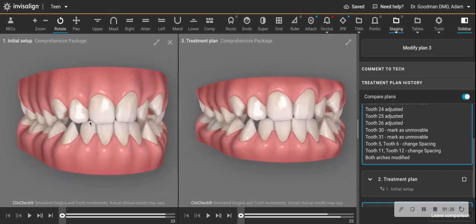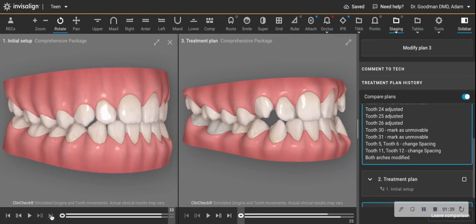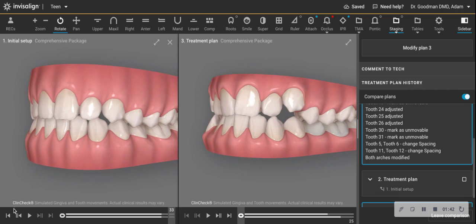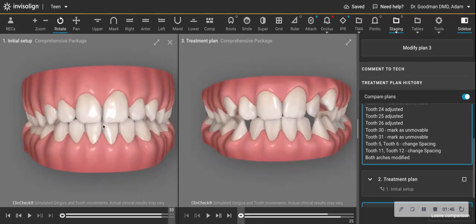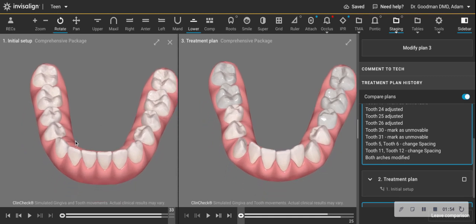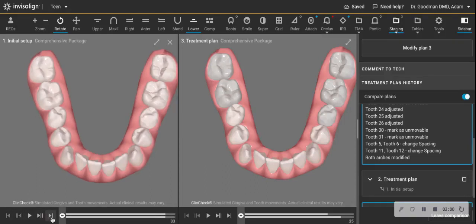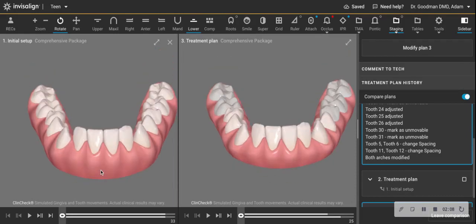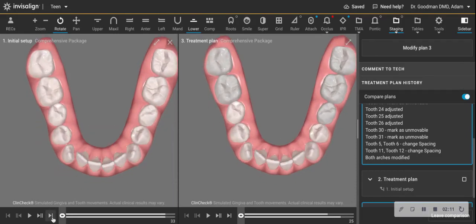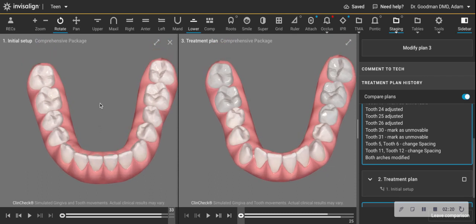If you look here, this is what came back from Invisalign. Forget the canines coming down — even think about this as if you were going to do it with braces. Basically, that's too good to be true after alignment. The key is the lower incisors. The ClinCheck shows improving crown inclination with extreme lingual root torque, which is challenging at best even with fixed appliances. With aligners, trying to grab these crowns that aren't super tall and kick those roots lingual without much depth of bone is really not going to play out well.